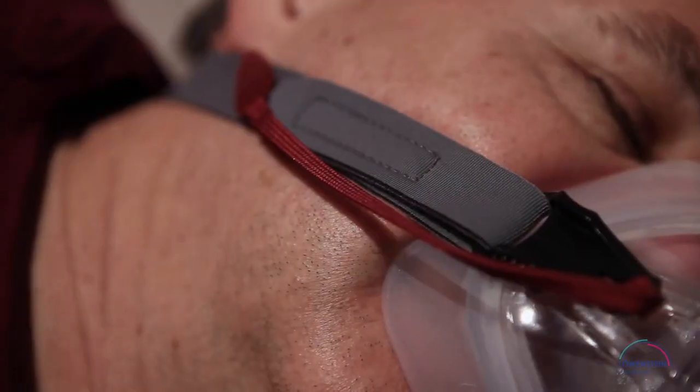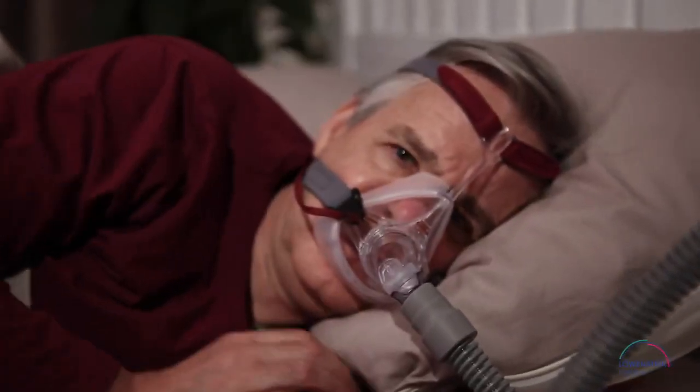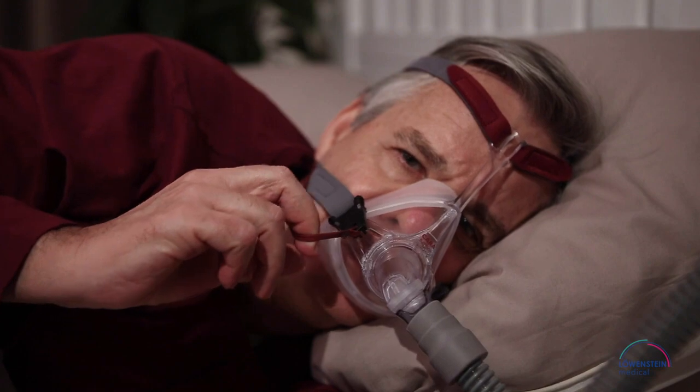A practical quick release cord on the side of the Cara Full Face ensures that you can remove the mask with a simple movement. If you're startled awake and suddenly feel confined, pull on the cord and remove the mask.